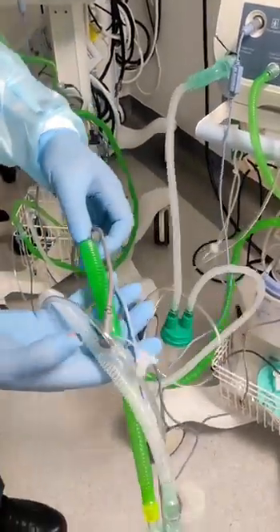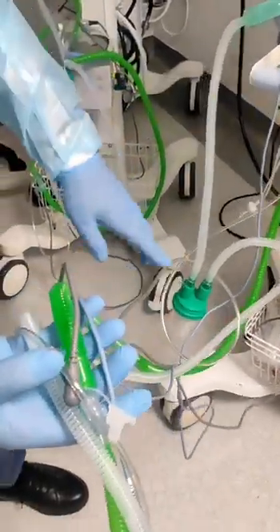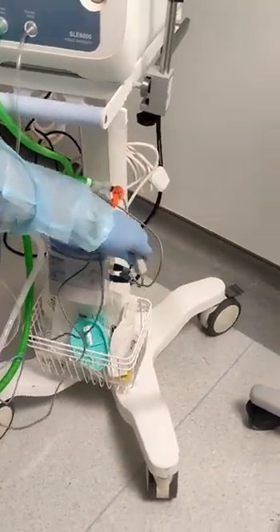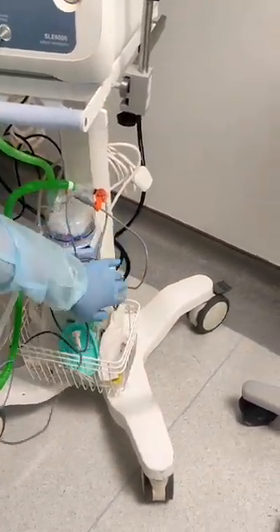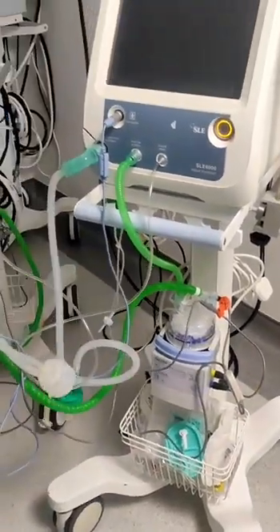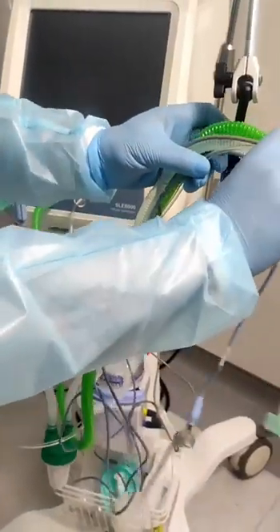This is the single limb — heated. That is not correct to use with the heated single limb. We use the single limb, but this is just for demonstration purposes.